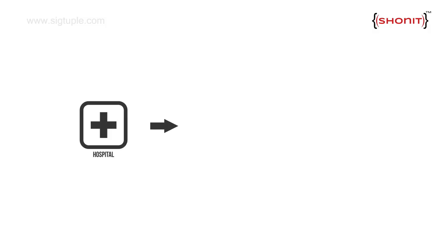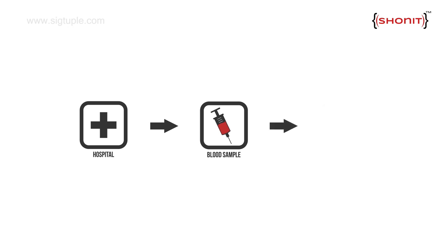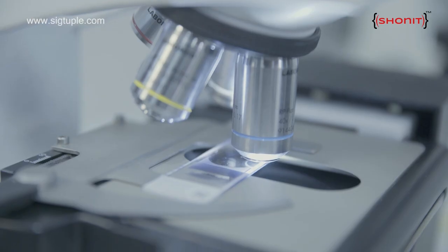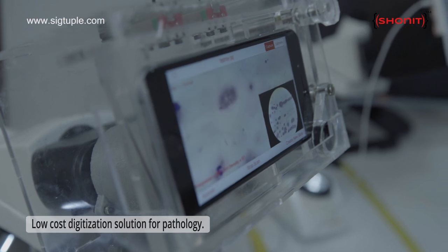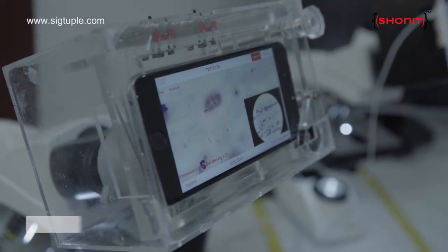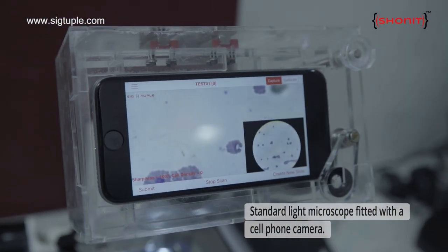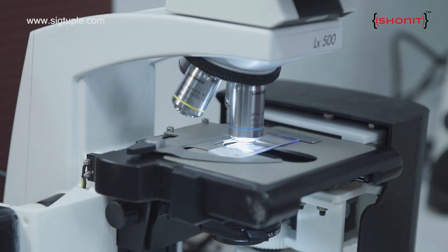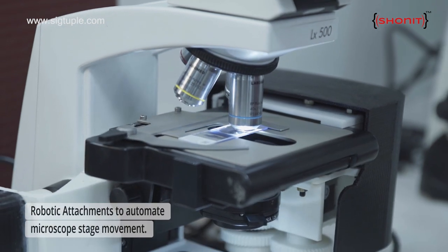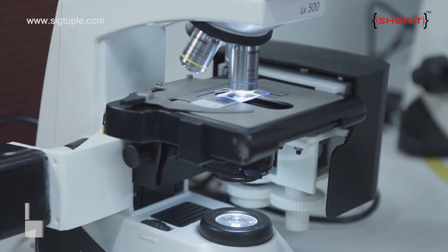Shonith consists of two parts. The smart microscope consists of a standard light microscope. It has a cell phone based camera fitted on the binocular eyepiece of the microscope through which the images are taken. In the automated version, we have actually created a microscope which moves itself.